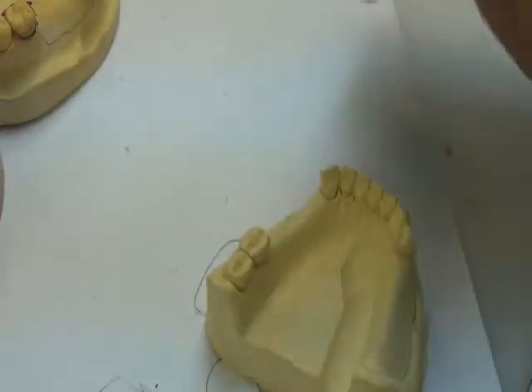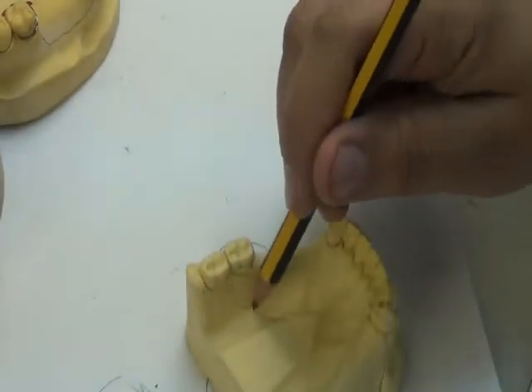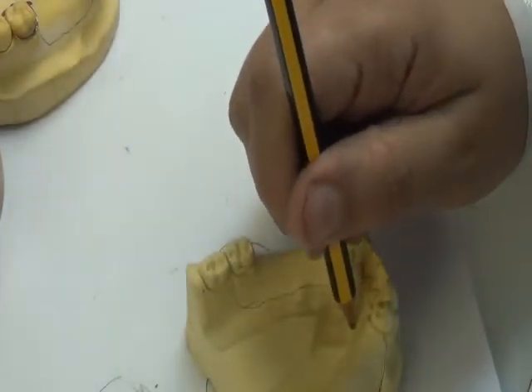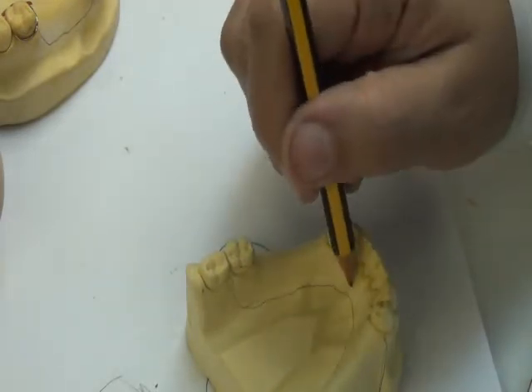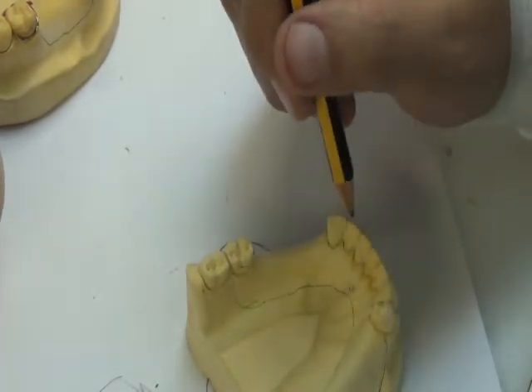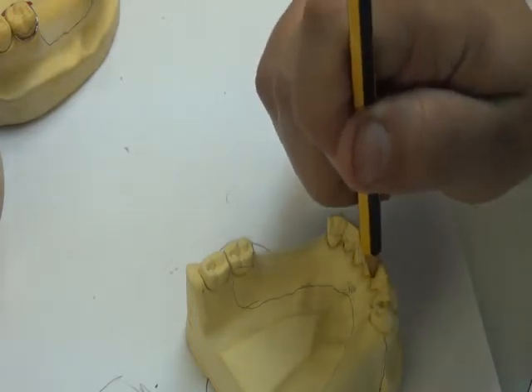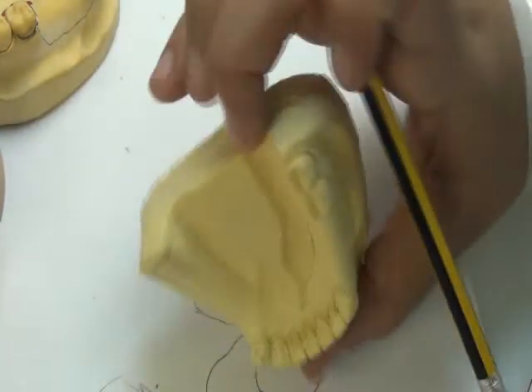But lingually, it's another situation. I don't have the full palate to strengthen the acrylic. The acrylic will be very narrow in this area. It's small and narrow. This might expose it to fracture. So I need to extend my acrylic to the other side, the lingual side. If I end it away from the gingiva, leaving a distance of 4 to 6 millimeters, the acrylic will be very narrow here and it will break. So whenever I'm doing a lower RPD, with bilateral or even unilateral saddle areas, I should extend the acrylic up to the teeth.